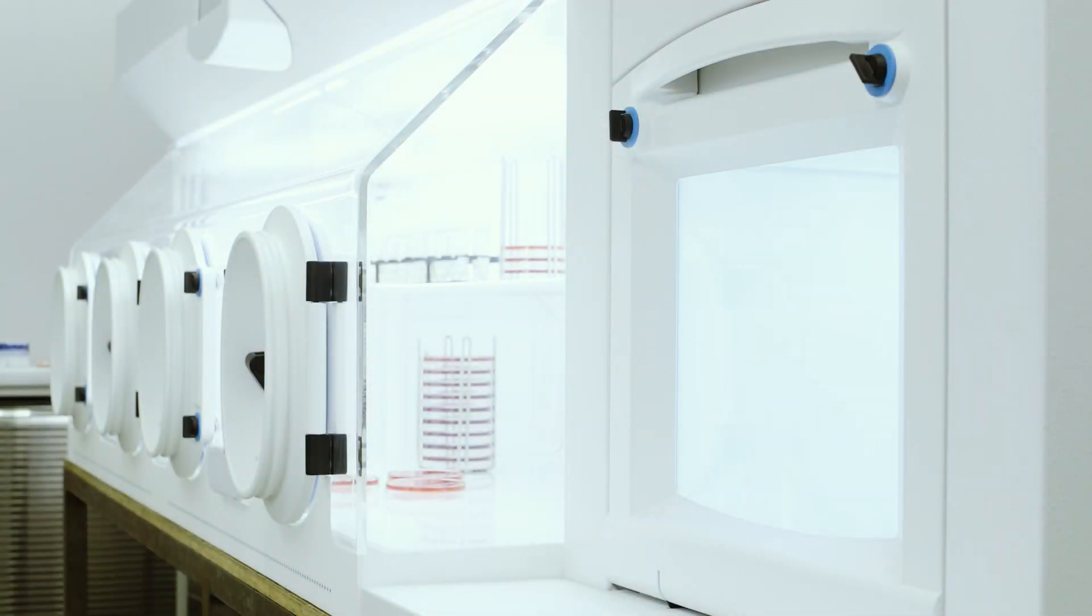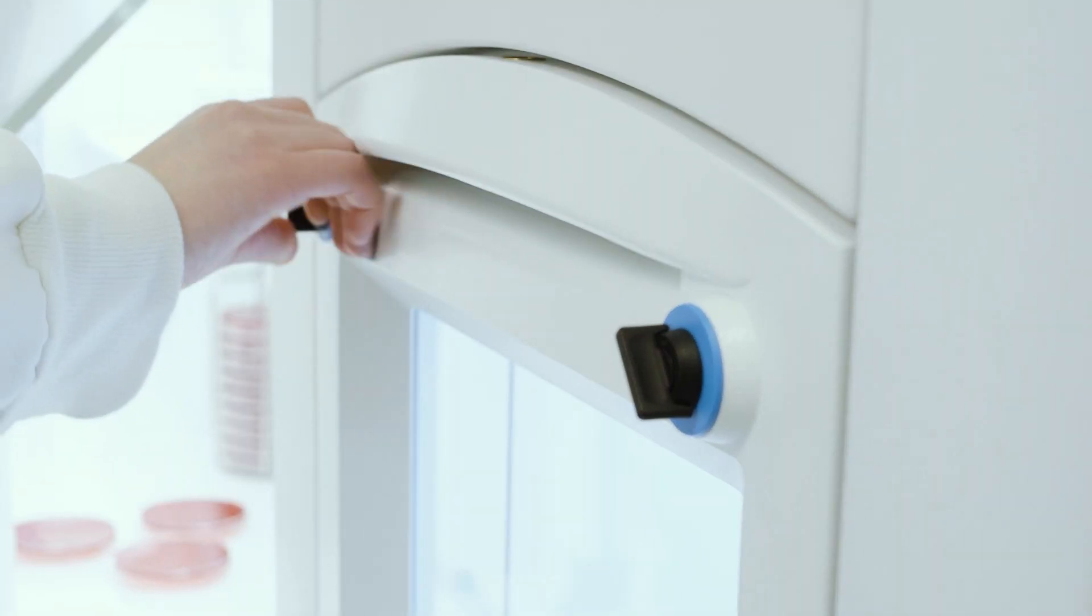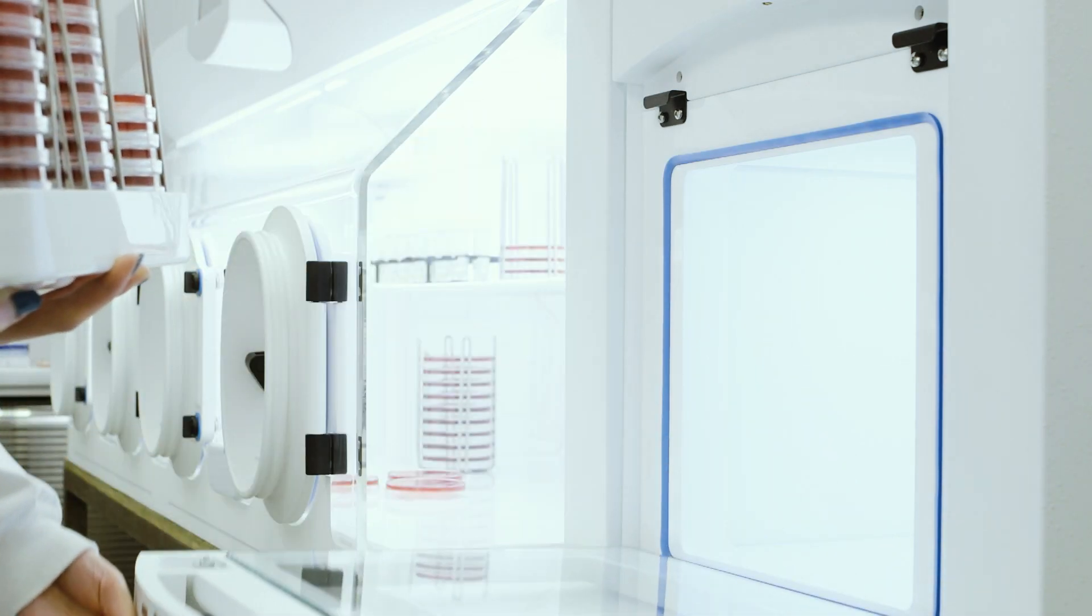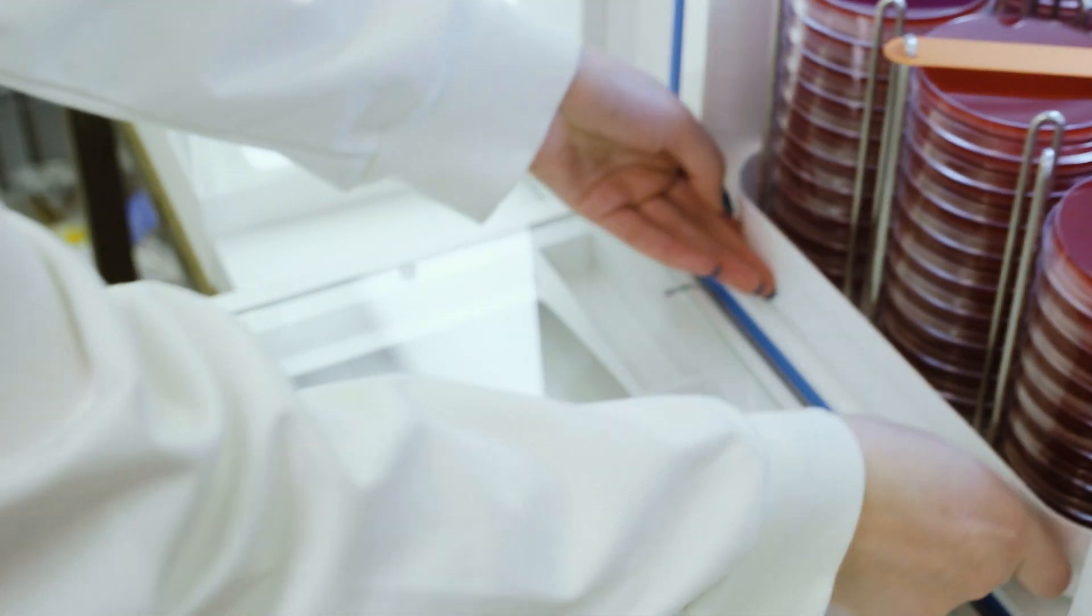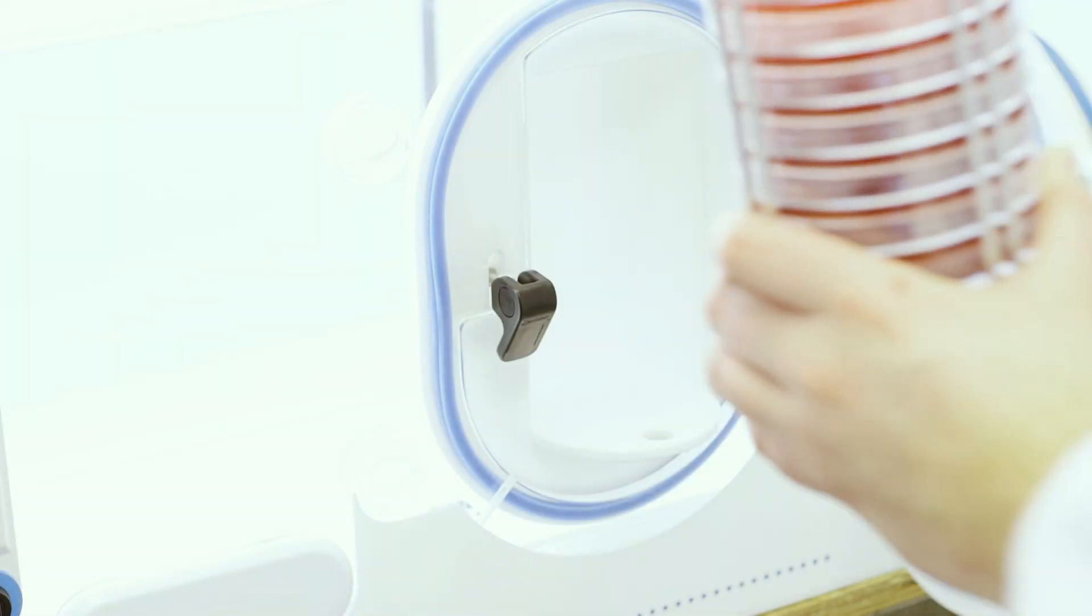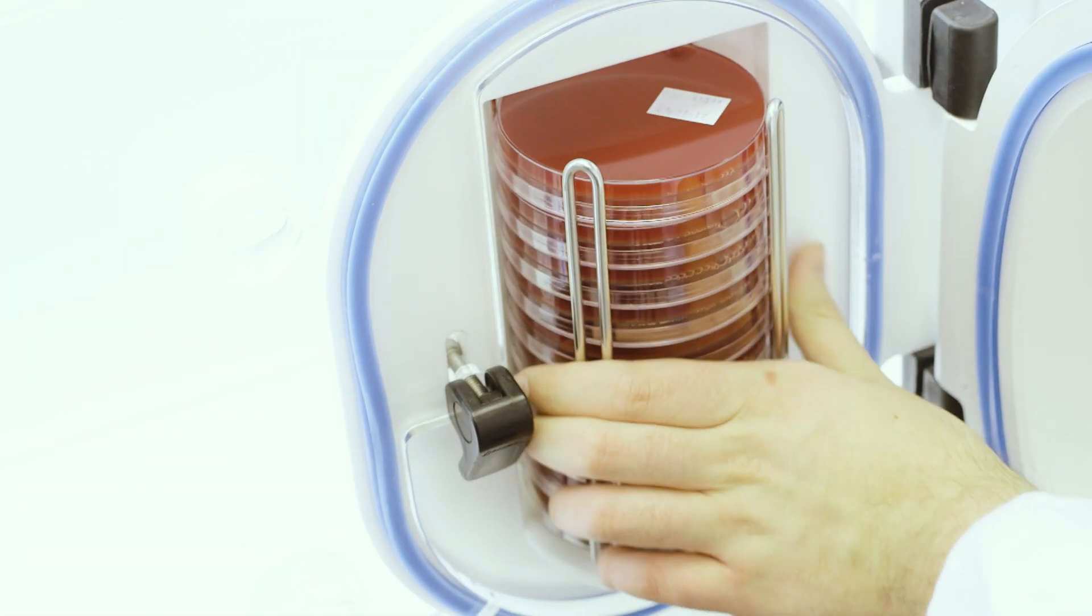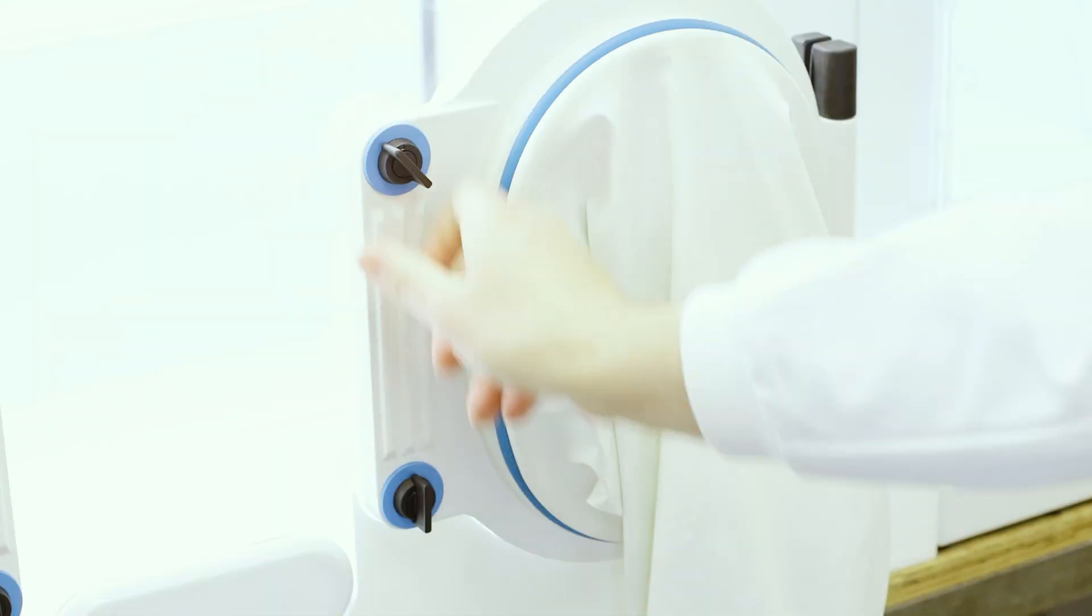Larger microaerobic workstations have airlocks with greater capacity for transferring bulkier items. In addition to the larger airlock, the portholes of some Whitley workstations also allow the transfer of plates in and out of the workstation.